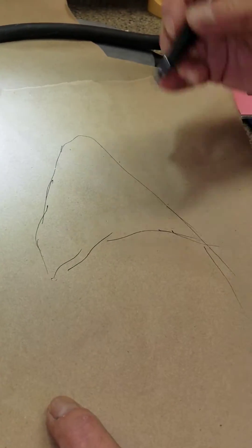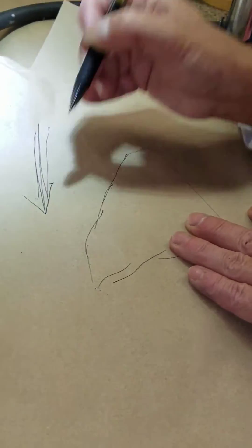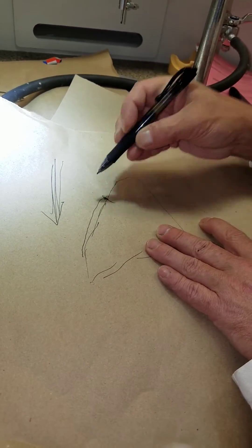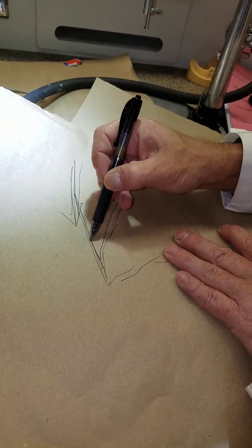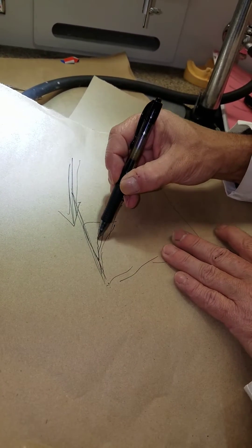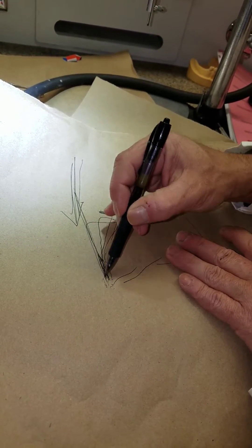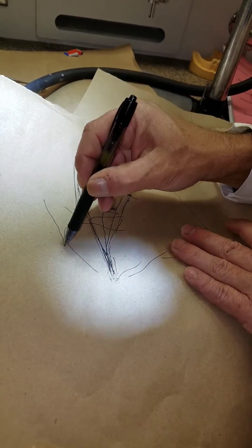Path of insertion is the way you place your wax — a lot of you like to just blob wax down, but that's too small because we need to get capture up here. Imagine your path of insertion is this way, so why not build your wax up to accommodate that? Most of you will always lean them over like this and then you don't have enough capture, or some of you will forget about your path of insertion and your hygienic emergence out of the gingival sulcus and you'll create an undercut.